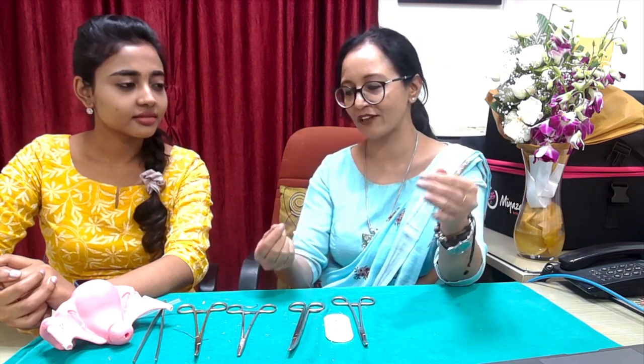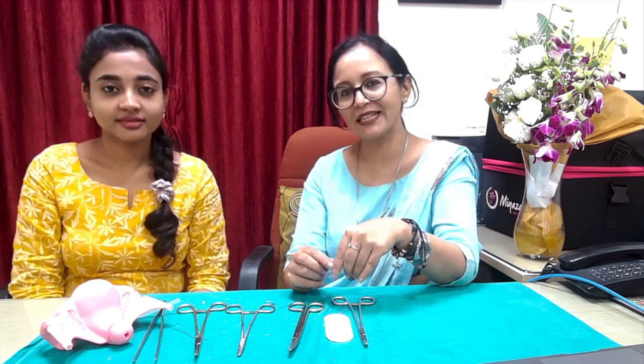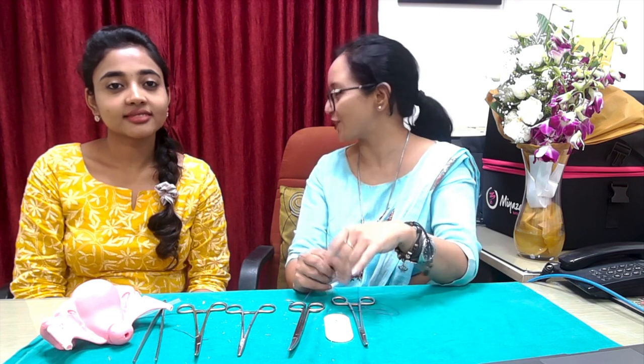Regarding hand knots — tying without instruments — whenever we show that technique it is more of a show-off, because knots with instruments serve exactly the same purpose. The disadvantage of hand knotting without instruments is that it wastes more suture material. It looks beautiful but is not required at any point in the procedure.